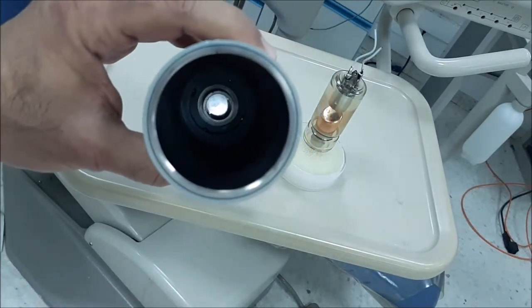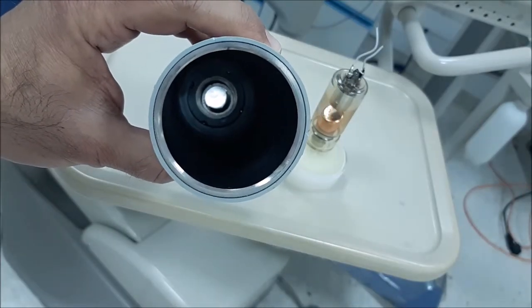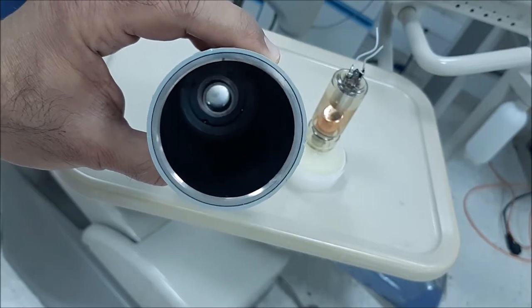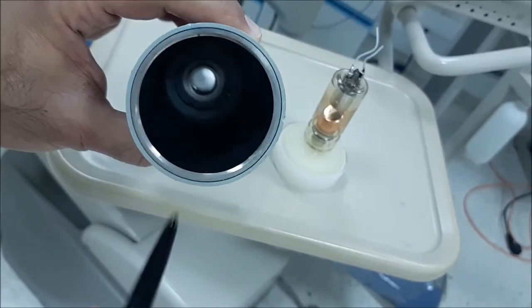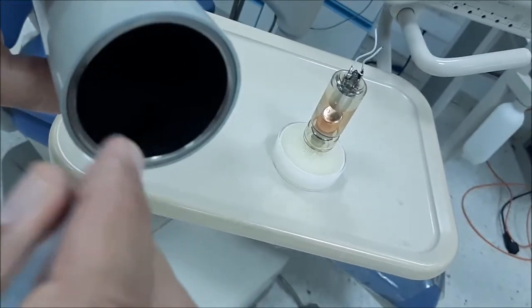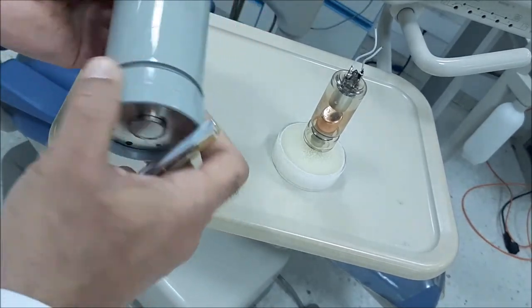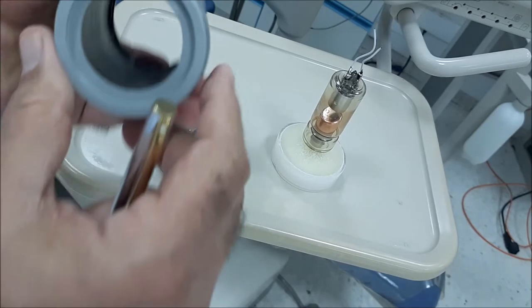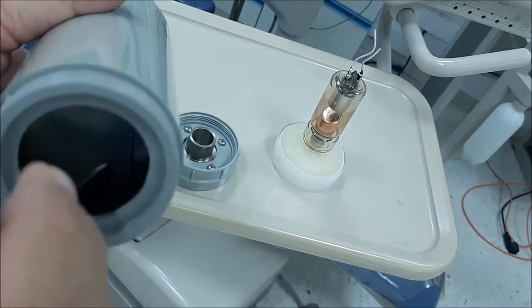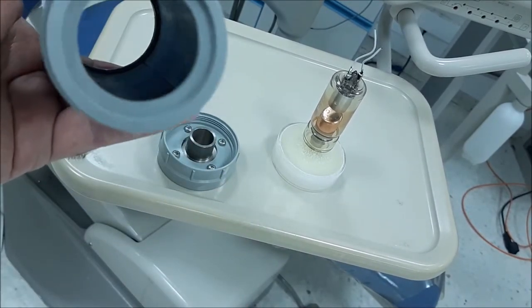From the inside, the shiny part is the aluminum filter. It's surrounded by the collimator, and if you can see from the inside, the inside of the plastic collimator is also leaded.